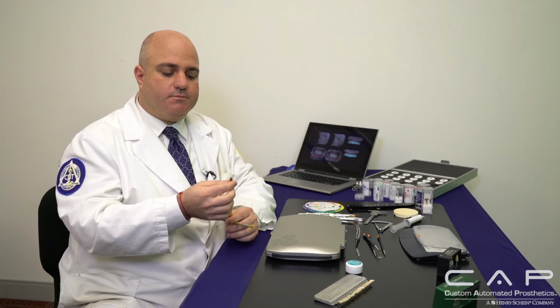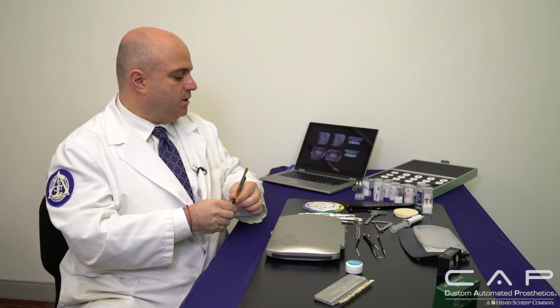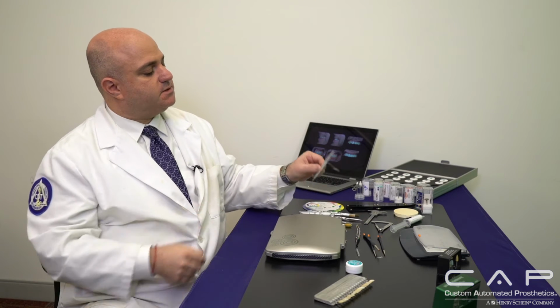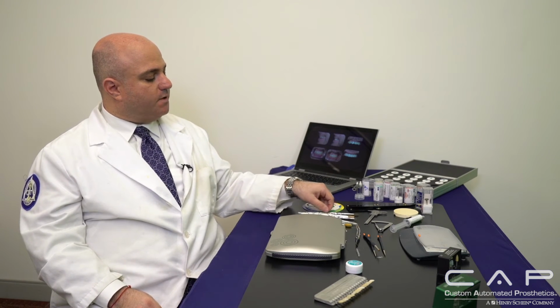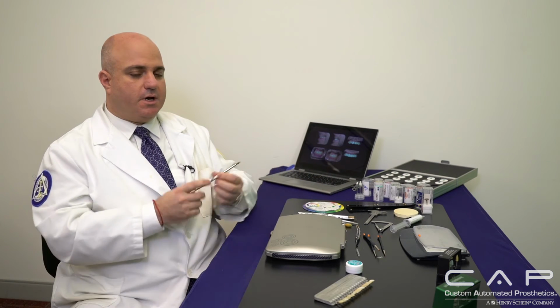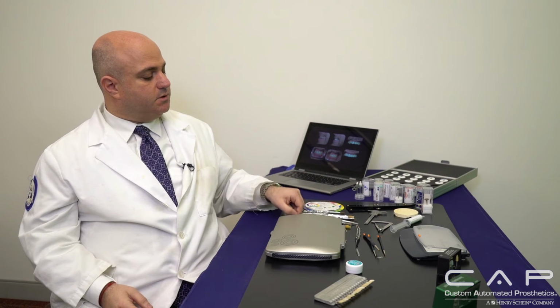So a red sable brush is always something that I use, as well as a whipping brush. I also use a spatula if necessary to do any craze lines or crack lines, as well as an assortment of other brushes, some of which have a bowl in them for better condensing and so on. But this typically is my go-to.